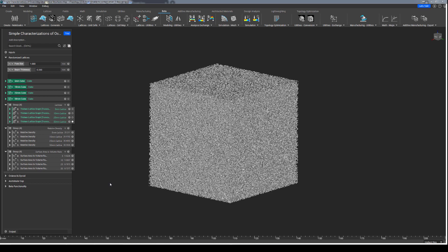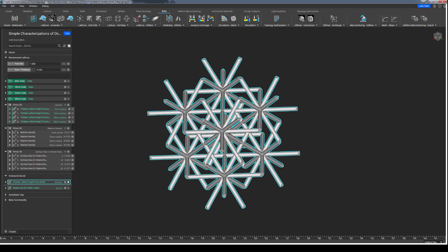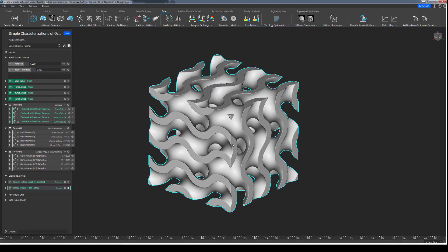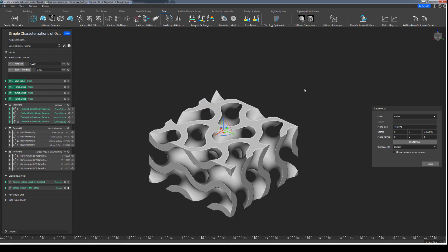A user may ask: why are these characterizations important? When you have something like a randomized lattice, typically what most orthopedic device designers expect is a pore size distribution value. Though this is what the industry typically uses as a baseline form of measurement, this is not a characteristic that is inherent to all lattice structures. A pore size can be described as the approximate distribution of sizes for the voids within the lattice — it can be easy to use this for a Voronoi-based randomized lattice, but it is much less applicable to a TPMS lattice like a gyroid or an ordered lattice like a face-centered cubic. For those structures, it's not immediately clear where a pore may begin and where a pore may end, so building a functional comparison at the digital level is not a simple task.